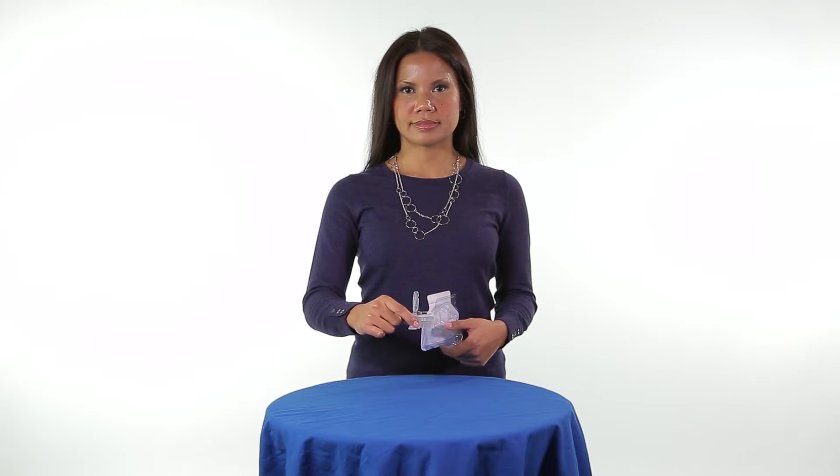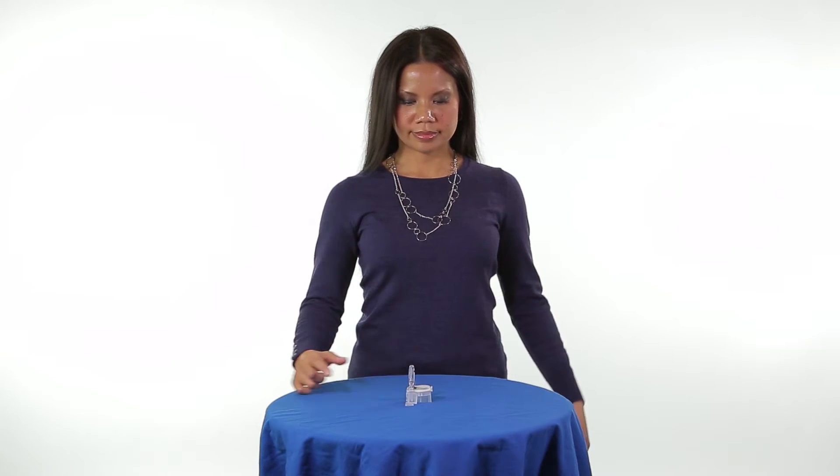Once removed from the package, sensors should be placed on a clean, hard, flat surface, such as a table.